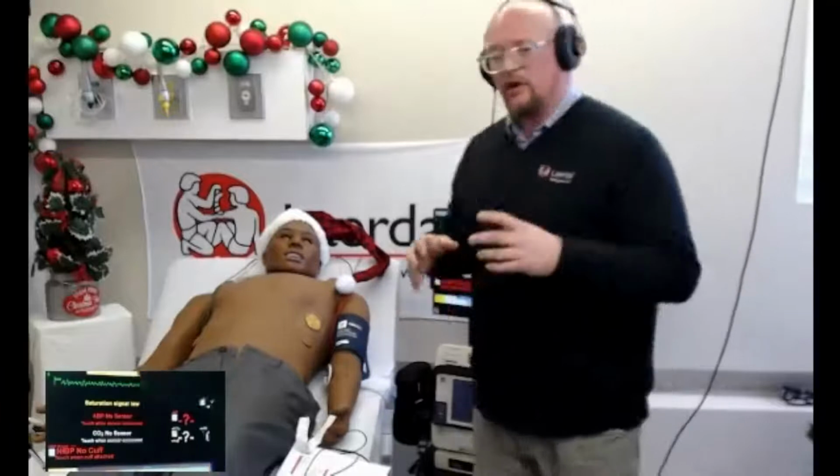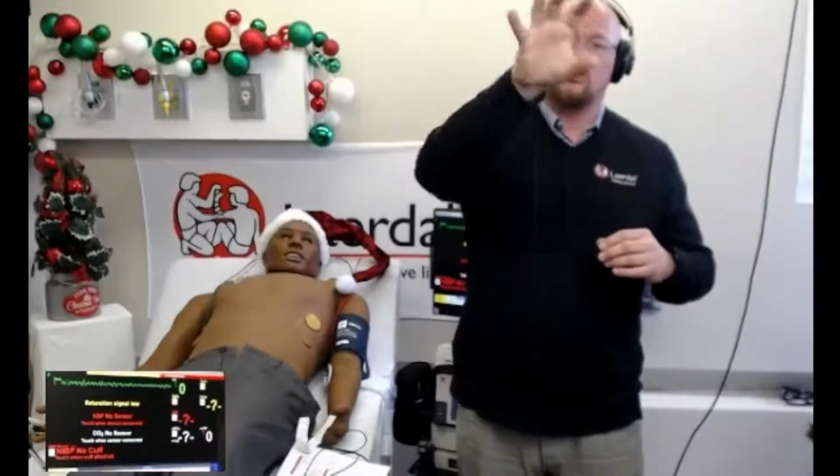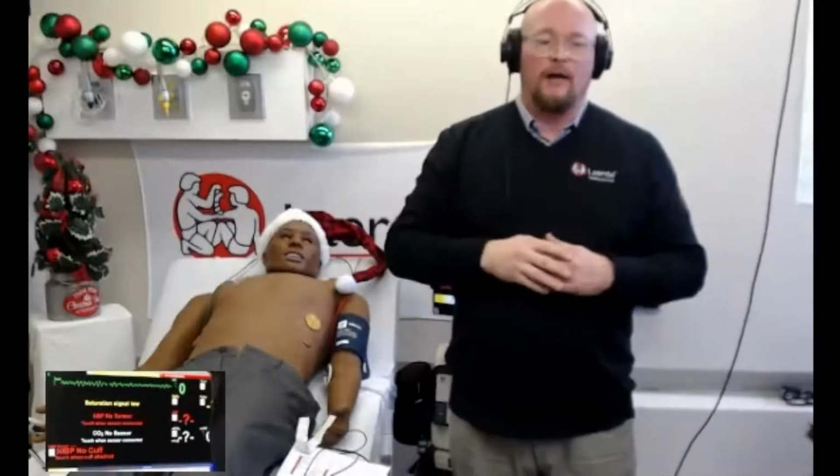Now, am I more impactful behind the computer? Absolutely. But if I'm just doing a very simple scenario, or I want to build a ladder scenario so that I can go from this rung to this rung to this rung, then these buttons become very useful.